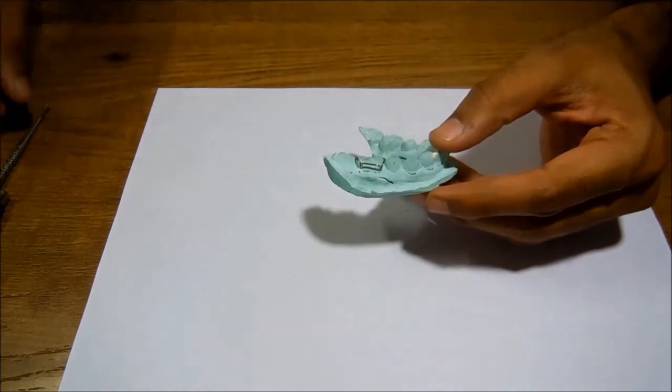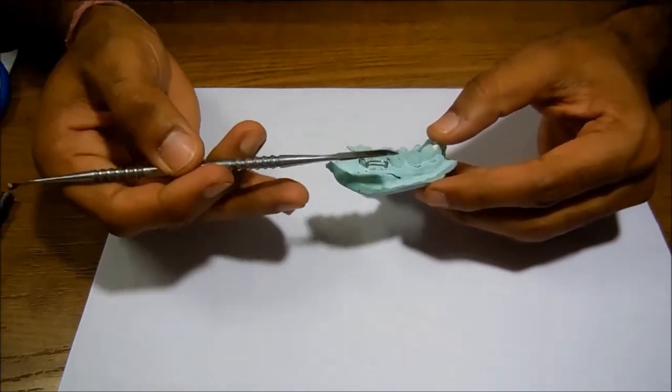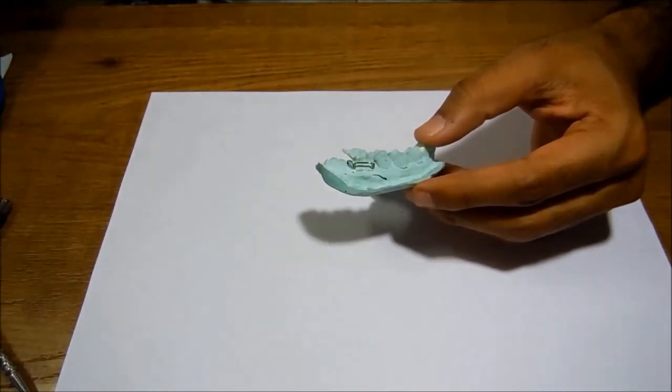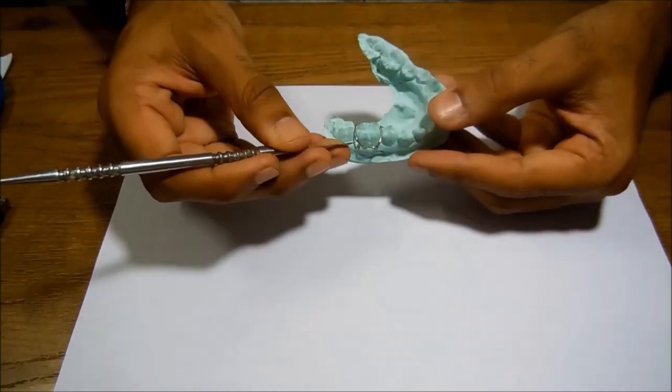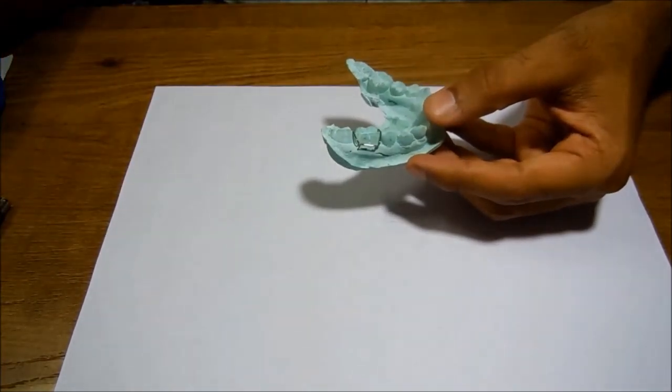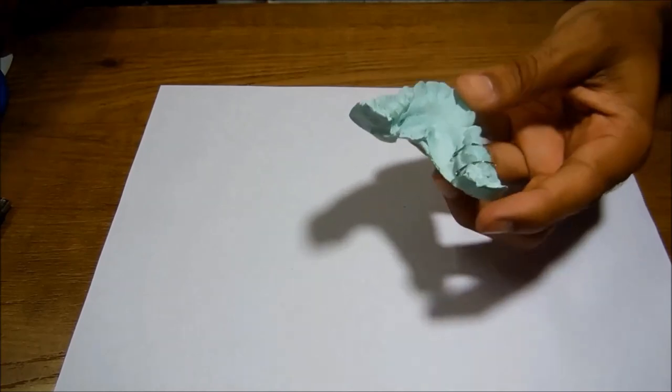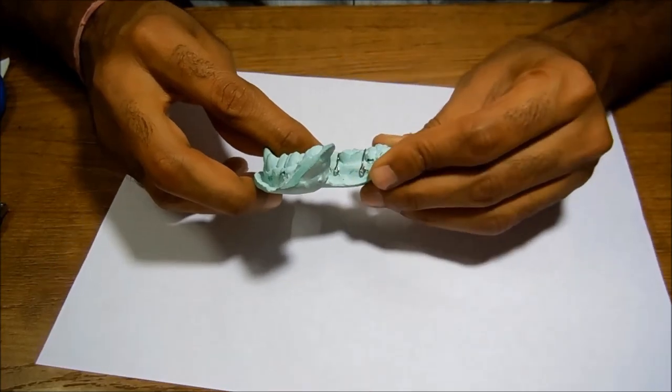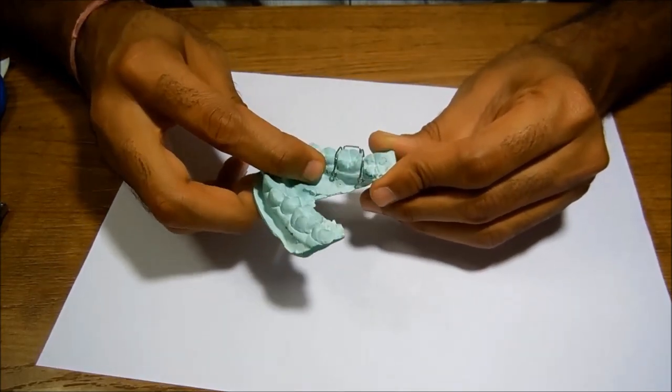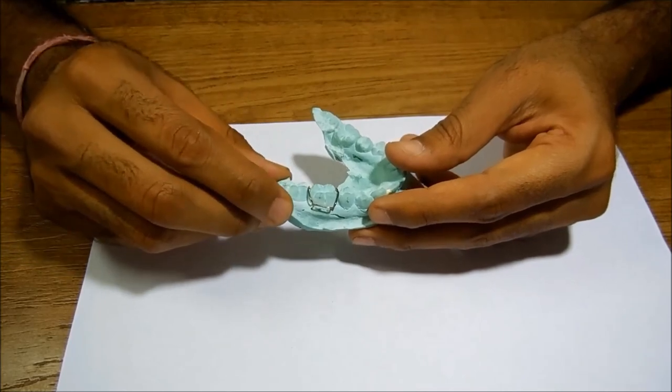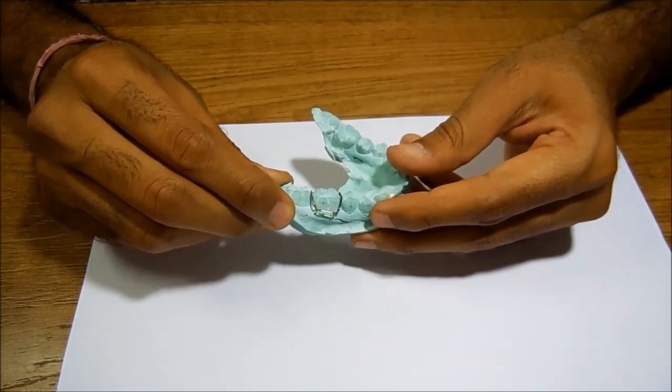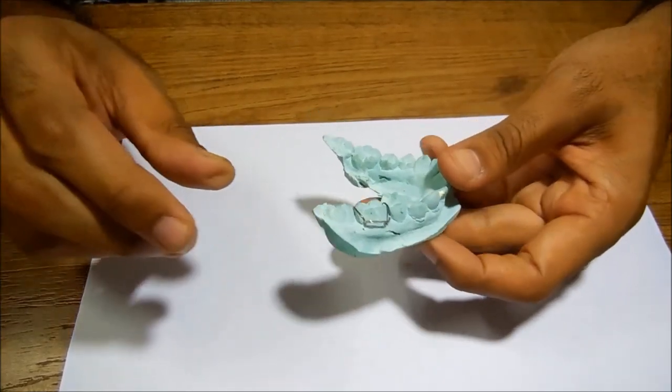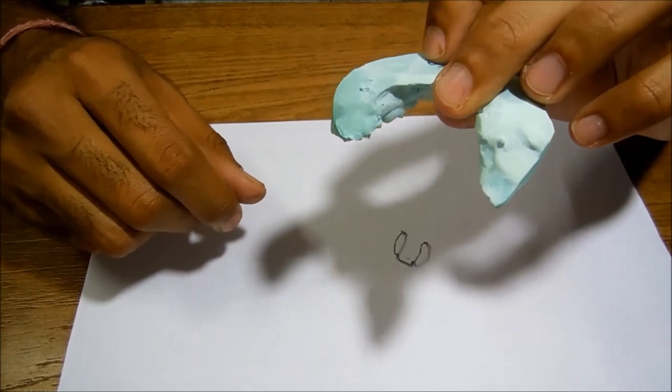The things your instructor will look into is this arm should be at the half of the cervical occlusion length, these angles should be 45 degrees, and well-adapted tag arms. I would have loved to have these bit longer, provided more sulcus was recorded in this cast. Since Adams clasp is a passive component of a removable orthodontic appliance, it should never be active, and how the passivity of the component is checked: it should fall once you evert your cast.